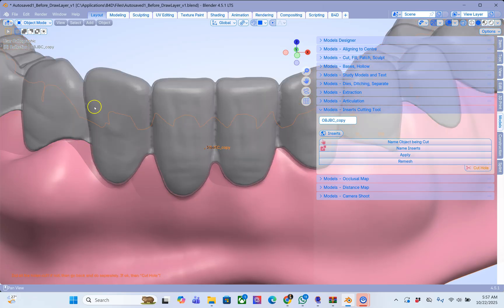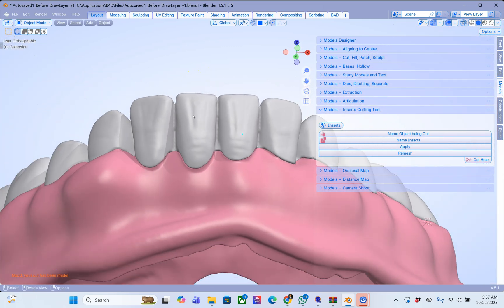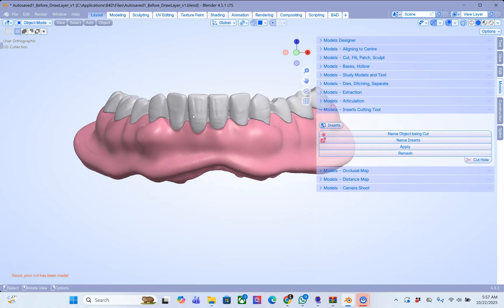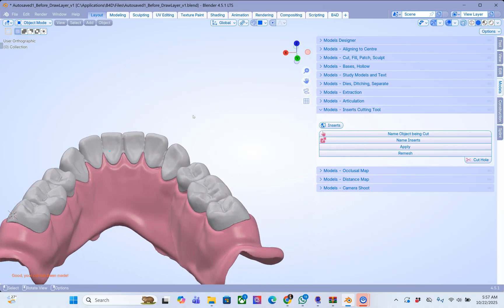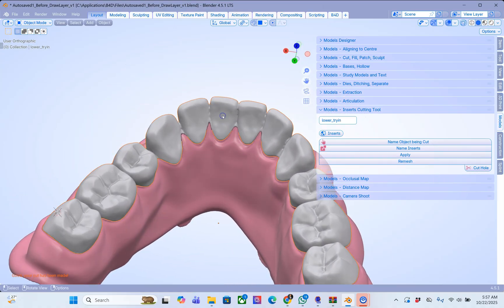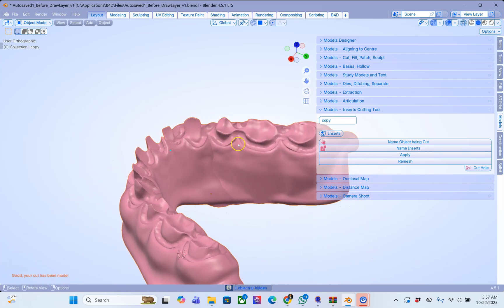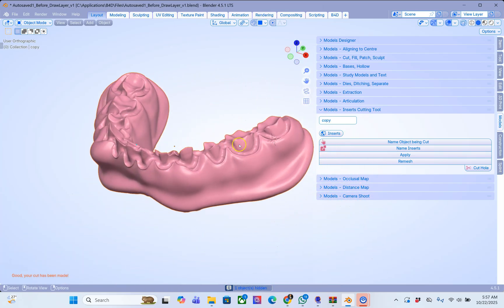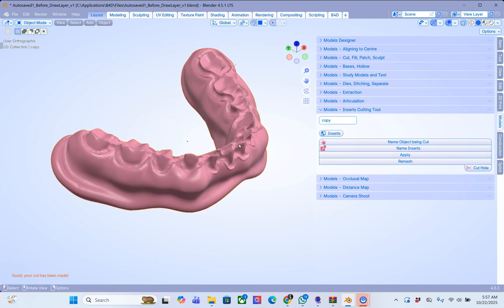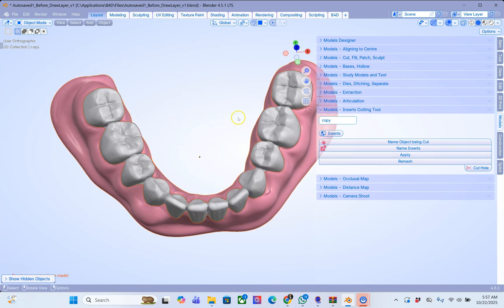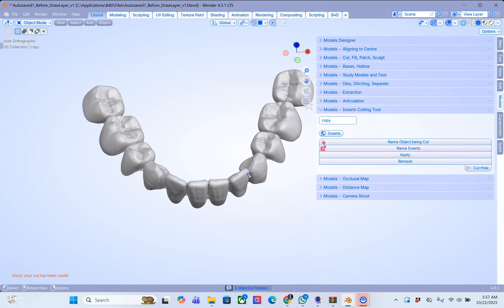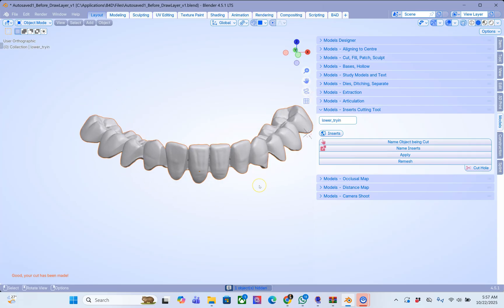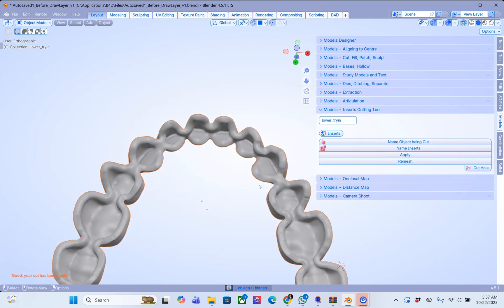And that's going to then create our cut and delete the cutting tool at the same time. Here we go. Quite easy to do. Let's just hide this to demonstrate. This is what it then looks like. And we've got our teeth which then looks like that. Very, very easy to do.